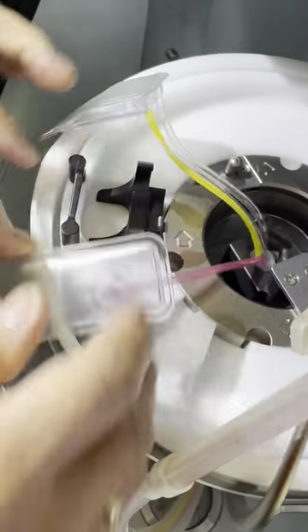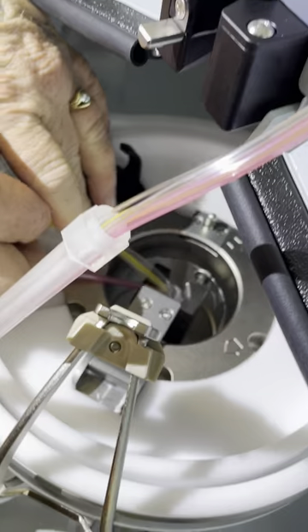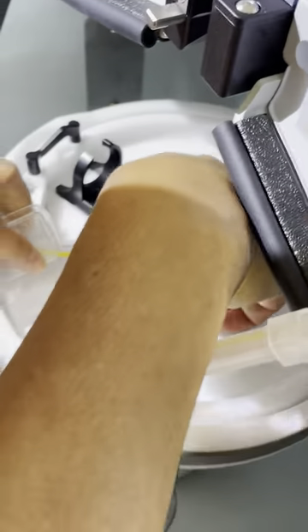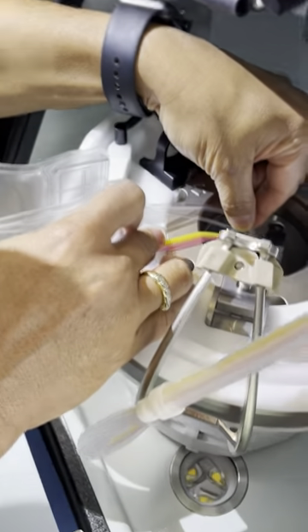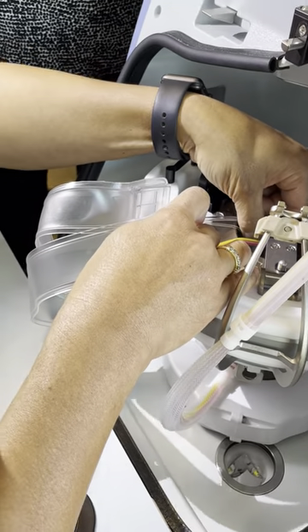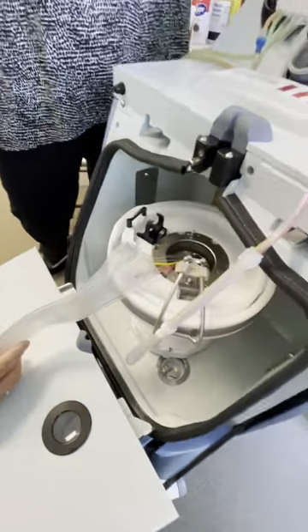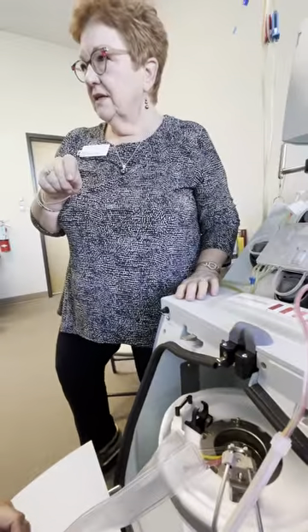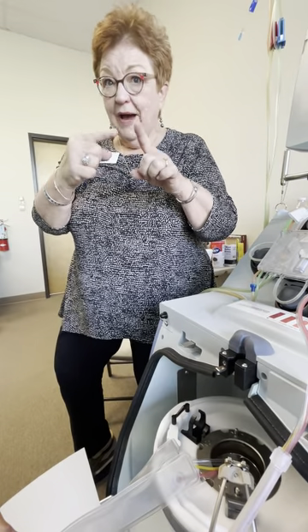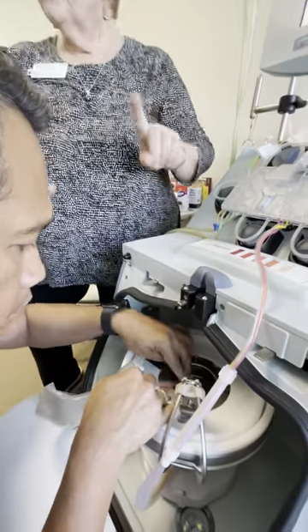Now you check. Do what I did. Red, yellow — over here, way over here. Put them where they're going to sit. Don't separate them; put them together, that's how they're going to sit so you can see what's going on down there. Move the clear tubes out of the way so you can see the red one and the yellow one. They are side by side — you see the difference? It's always nice to have someone misload it as an example, because otherwise you don't know what incorrect is. This is why we fuss so much about them being perfectly side by side, no crossing whatsoever. The centrifuge, when it spins, gets hot and the tubes expand in the heat. If one is lying on top of the other and gets bigger, it prohibits flow in or out depending on which tube is on the bottom. So we want them side by side so fluid can free flow through them. Does that make sense?